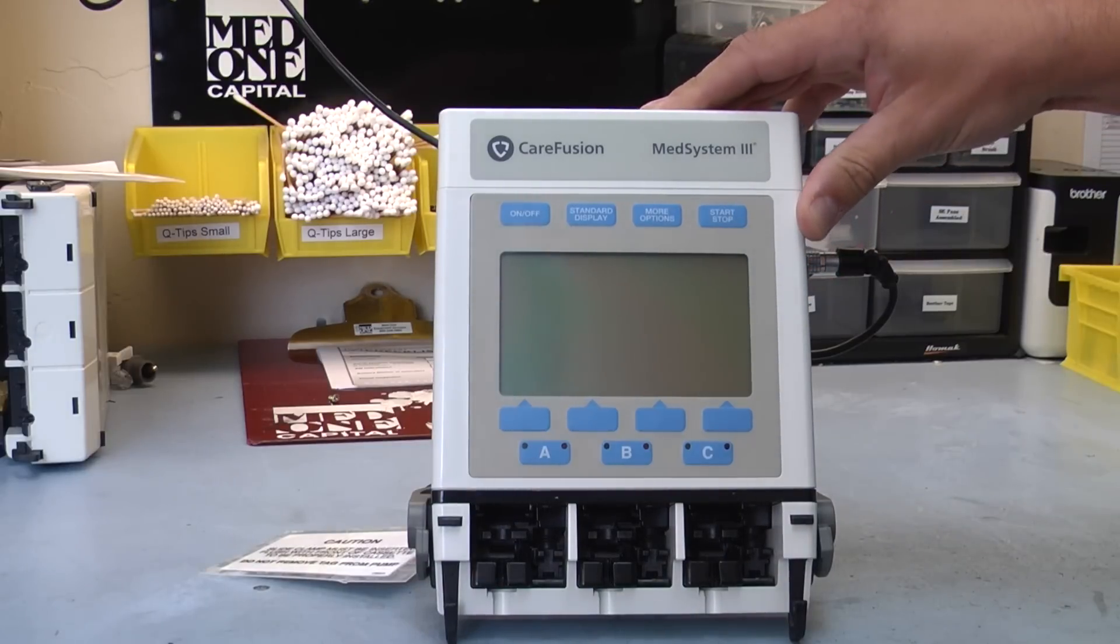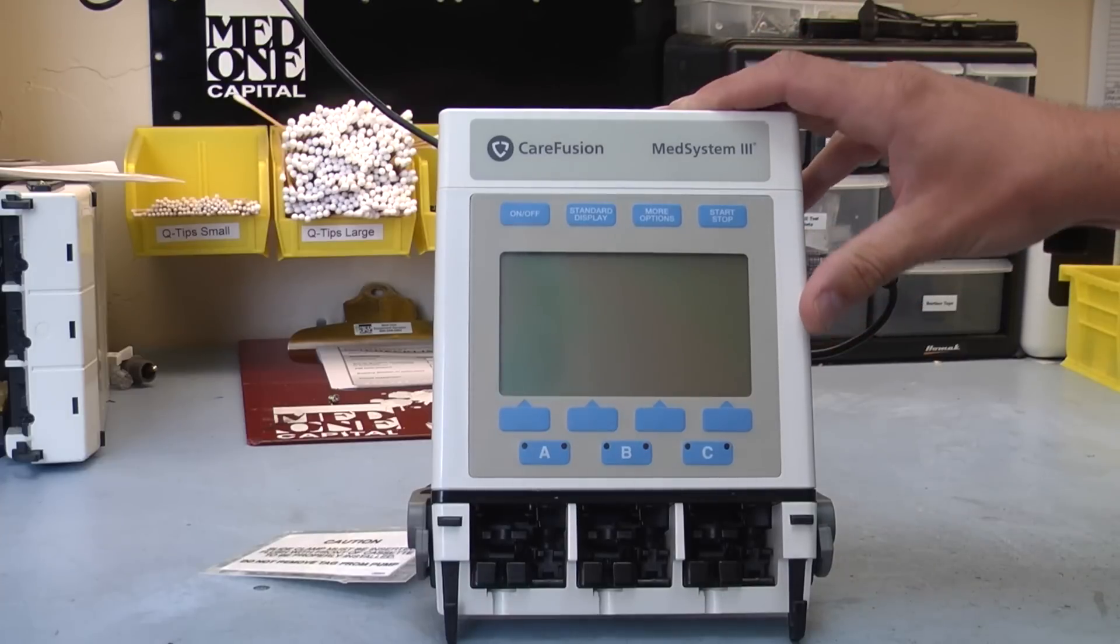The MedSystem III is being reintroduced from Carefusion, and this is their new model, the 2865.